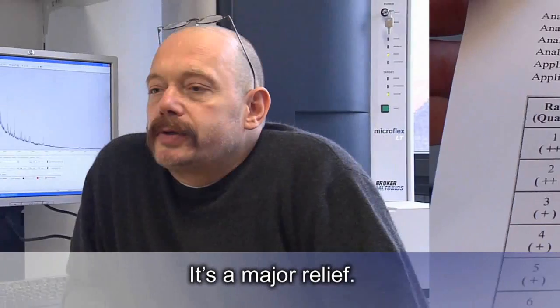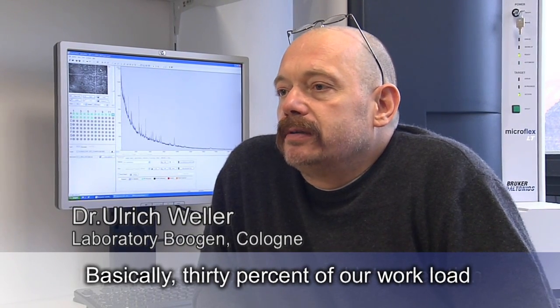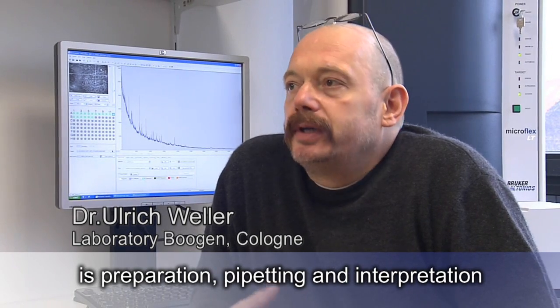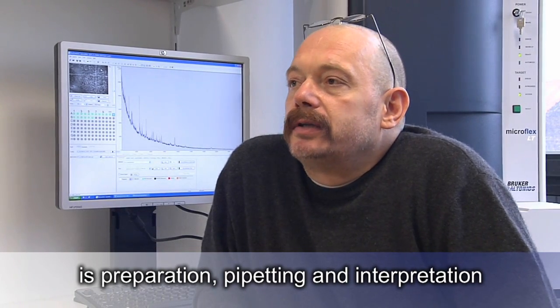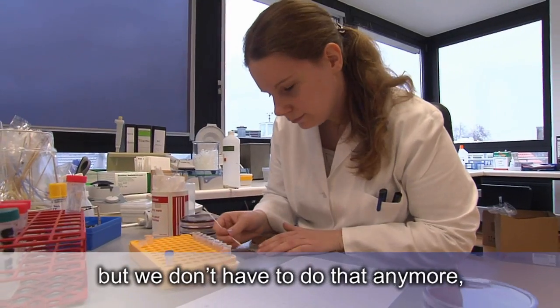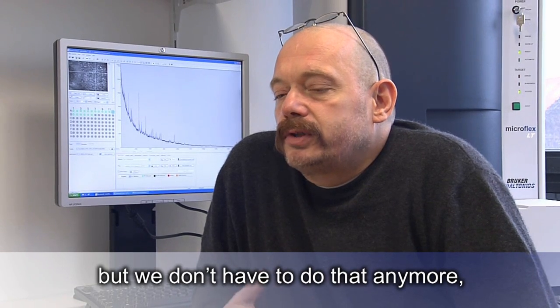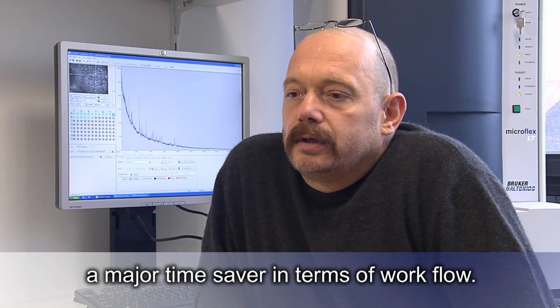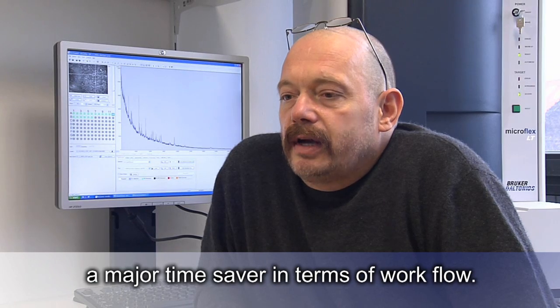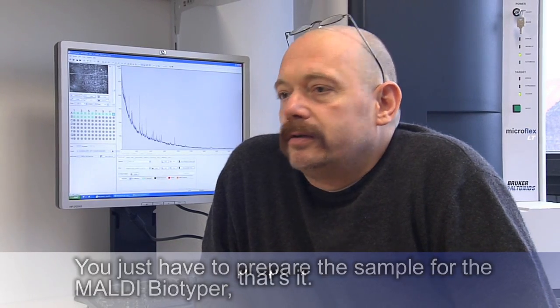It is a major relief. Basically, 30% of our workload is preparation, pipetting, and interpretation of the biochemical tests. But now we don't have to do that anymore. In terms of turnaround time, a major time saver in terms of workflow. You just have to prepare the sample for the Maldi Biotyper. That's it.